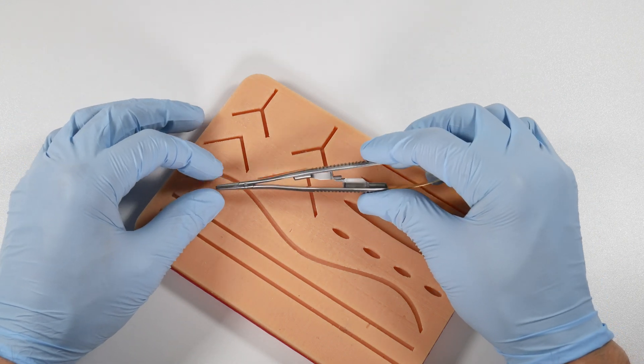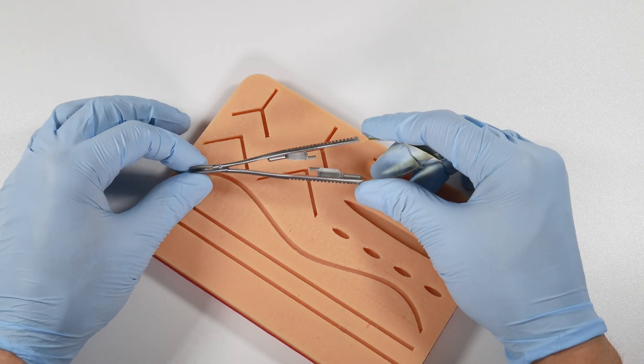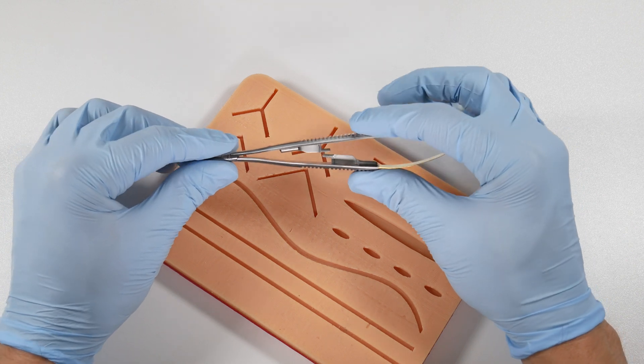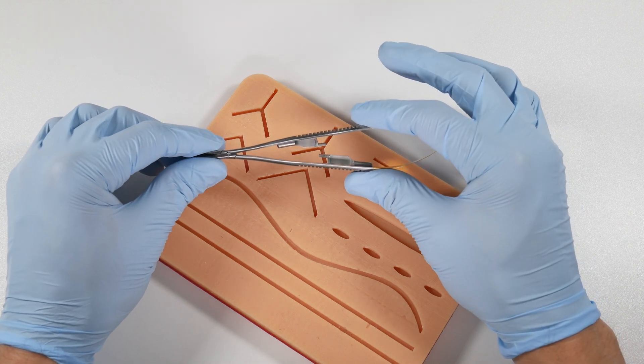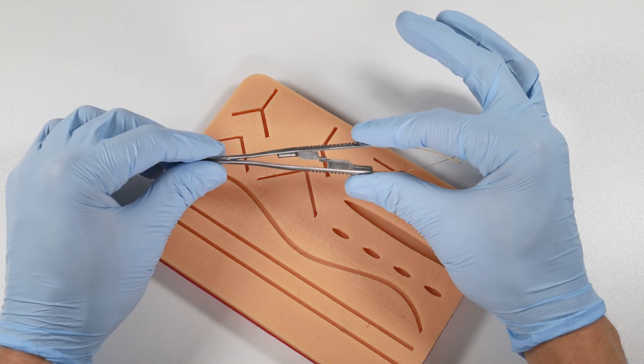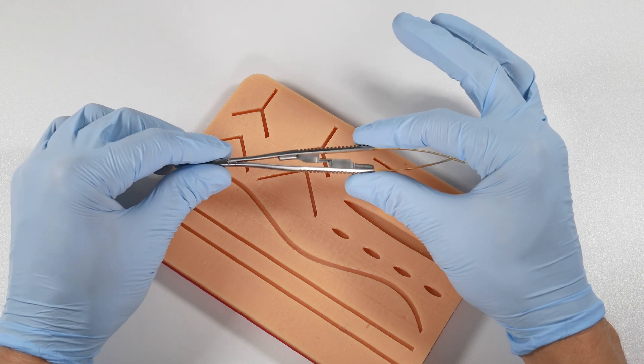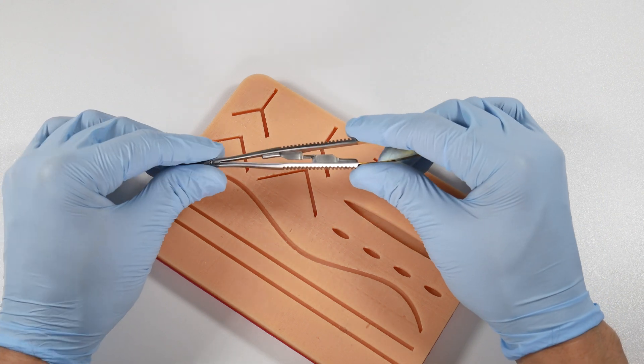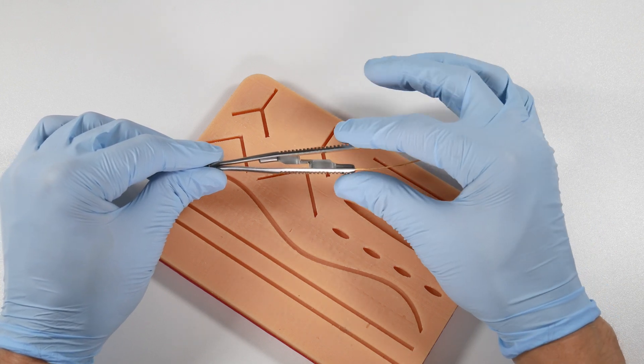Why do they use these? What would be the advantage? They have a very simple locking mechanism. If you listen for a minute, I'm going to click this together. All you do is one click and it's locked. That's kind of nice.